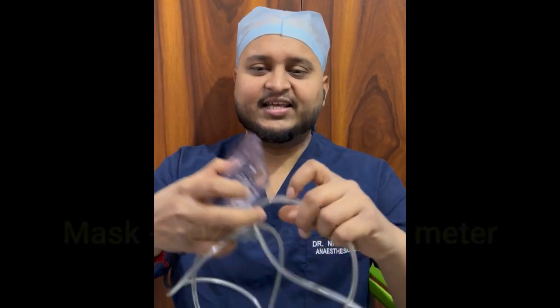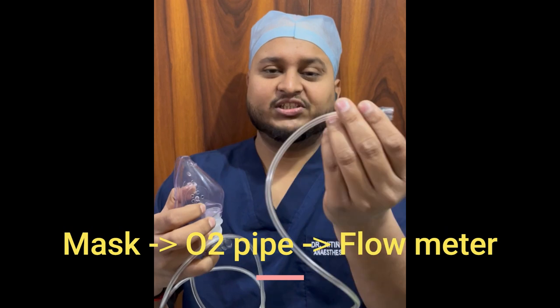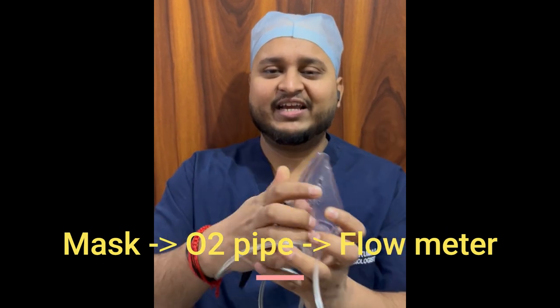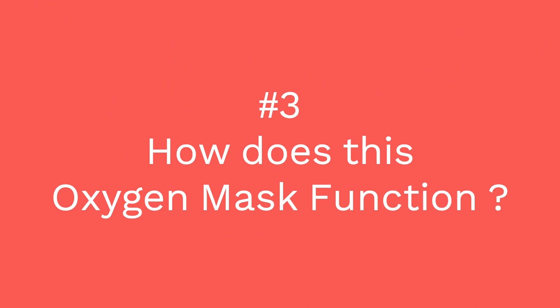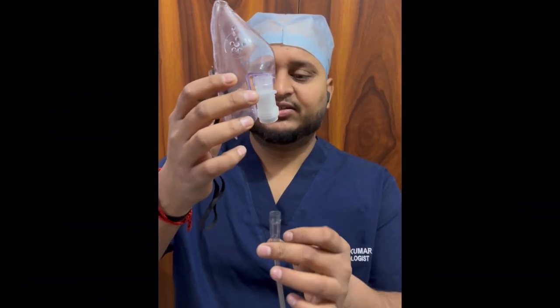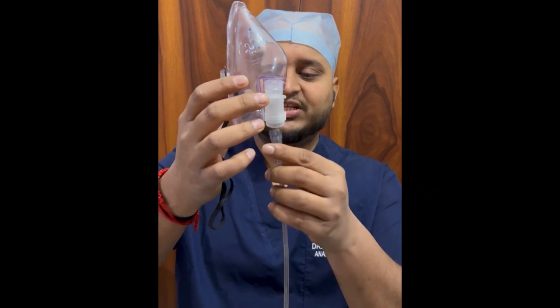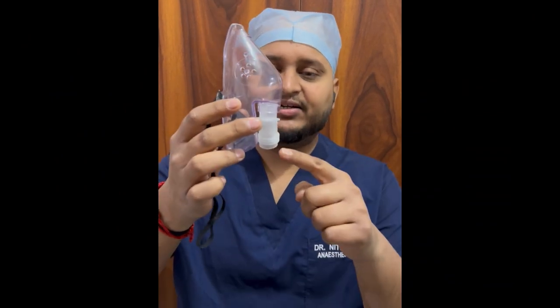The other end of the pipe is connected to the oxygen flow meter, from where we can regulate the oxygen flow. This oxygen mask functions like this — to this end we connect our oxygen pipe.